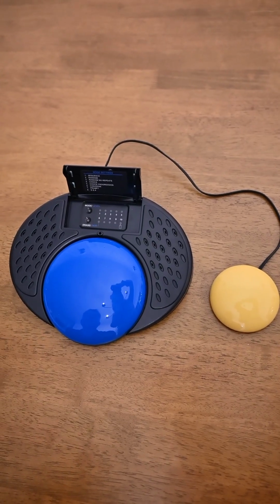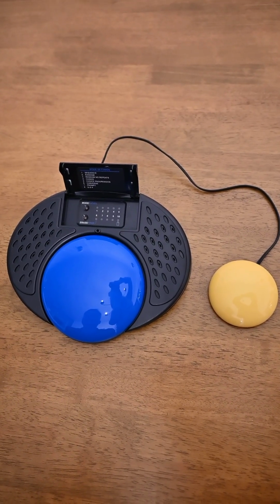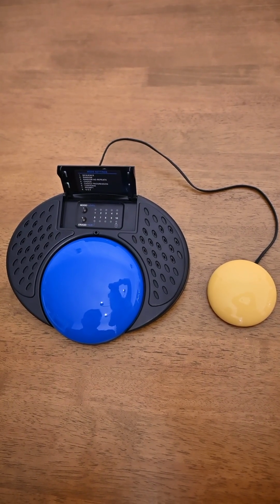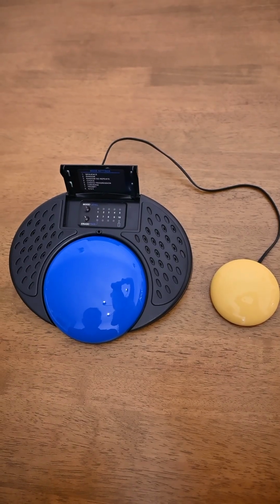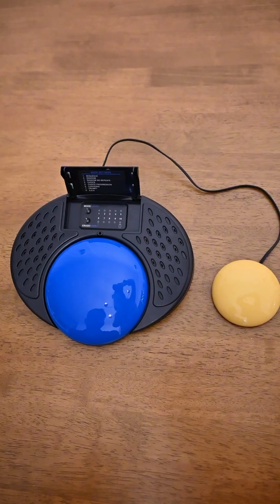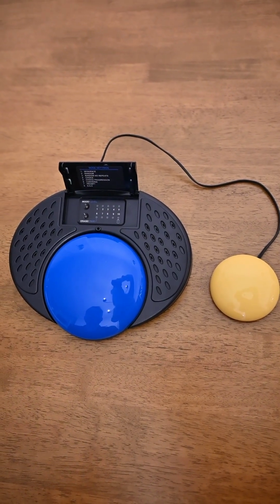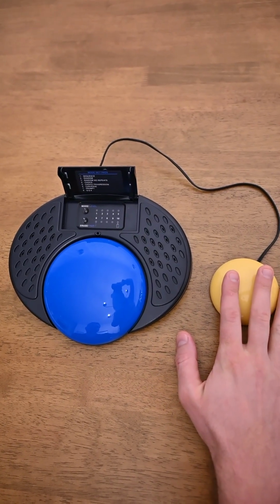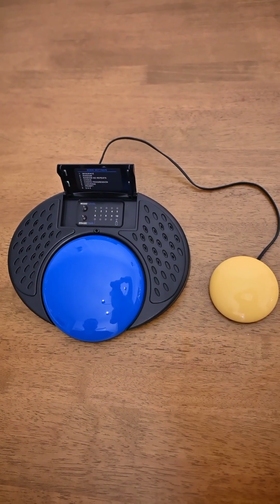The final mode we're going to look at is mode number 8, which is question and answer mode. And this mode allows you to record multiple sets of questions and answers, but it allows you to repeat the question and the answer multiple times before moving on to the next set of questions and answers. So for example, we have 3 questions and 3 answers recorded in at the moment. So we'll start by pressing the external switch, which speaks the question. What is your favorite color?